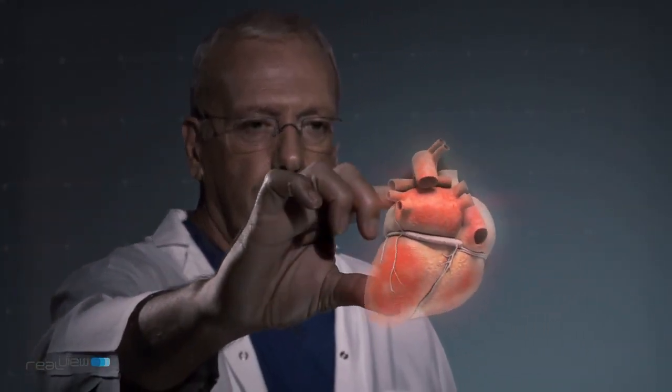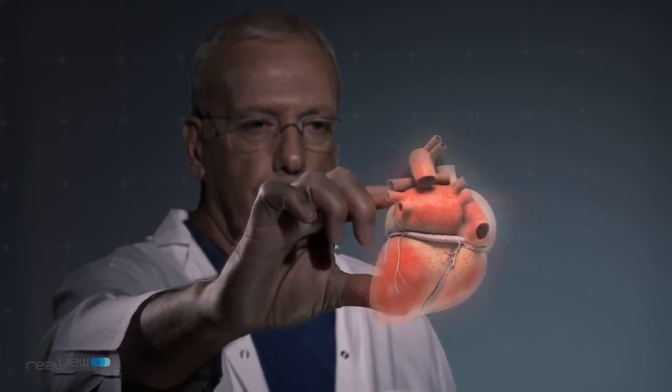We provide a hyper-realistic user experience presenting high quality, full color, and real-time true holography. We've invented a concept that we call image intimacy, where we allow the users the full freedom to engage with a 3D image literally.